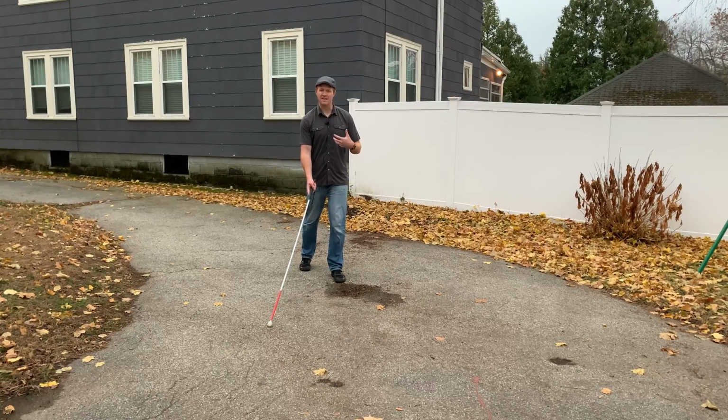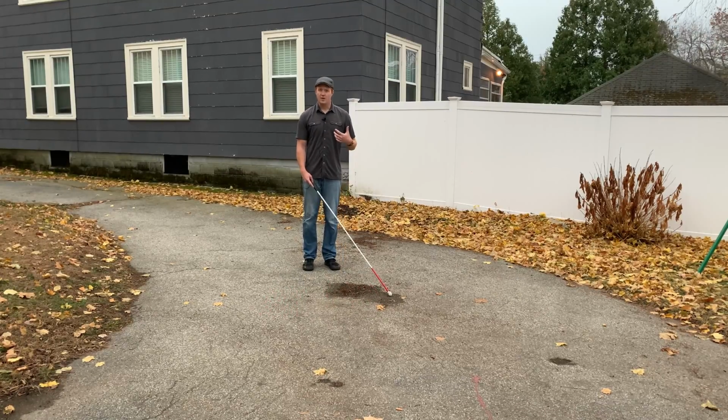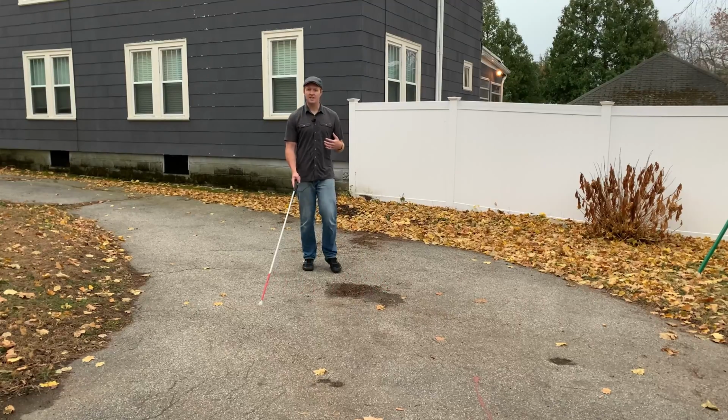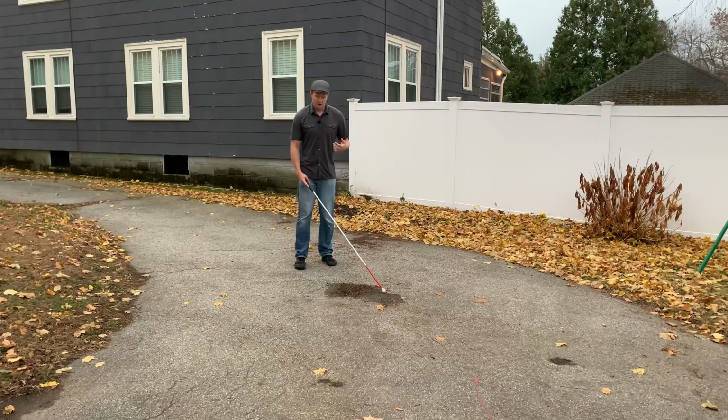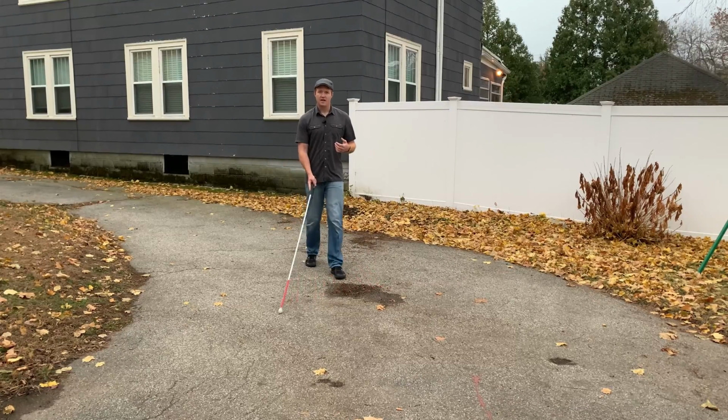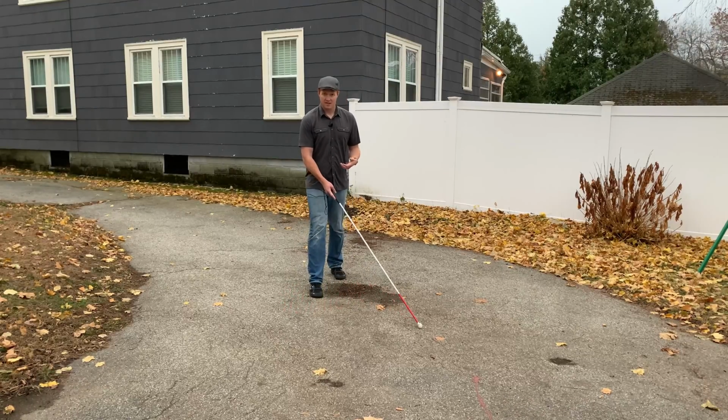That's how you are able to detect some of those textural changes that you normally wouldn't if your cane is just tapping left and right and not sliding on the ground. One thing to note: when you're doing this technique, you're going to want to slow down a little bit because you want to remain in step. Because the cane tip is sliding on the ground more than it normally does with 2-point touch, it requires you to slow down to remain in step. Let me demonstrate. I'm stepping forward with my left, cane tip hits to my right at 1 o'clock, slides forward. Stepping forward with my right foot, cane hits to the left at 11 o'clock, slides forward 4 or 5 inches.